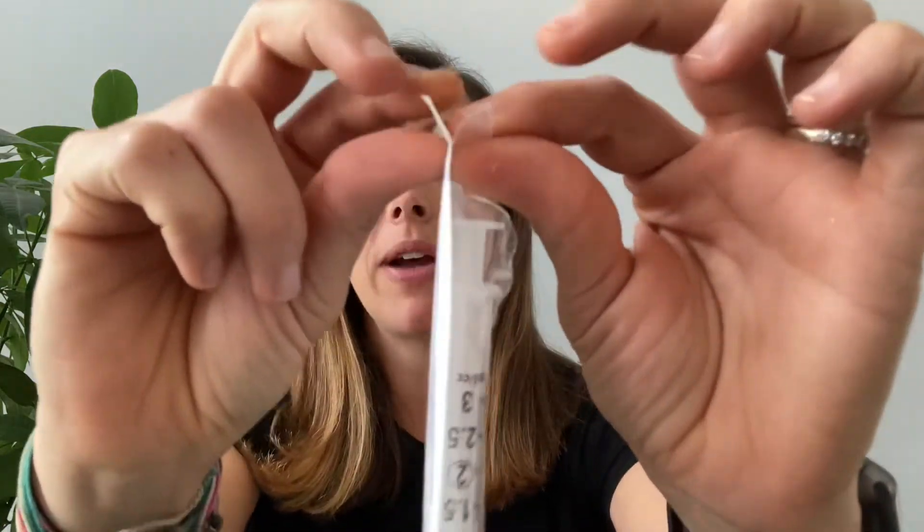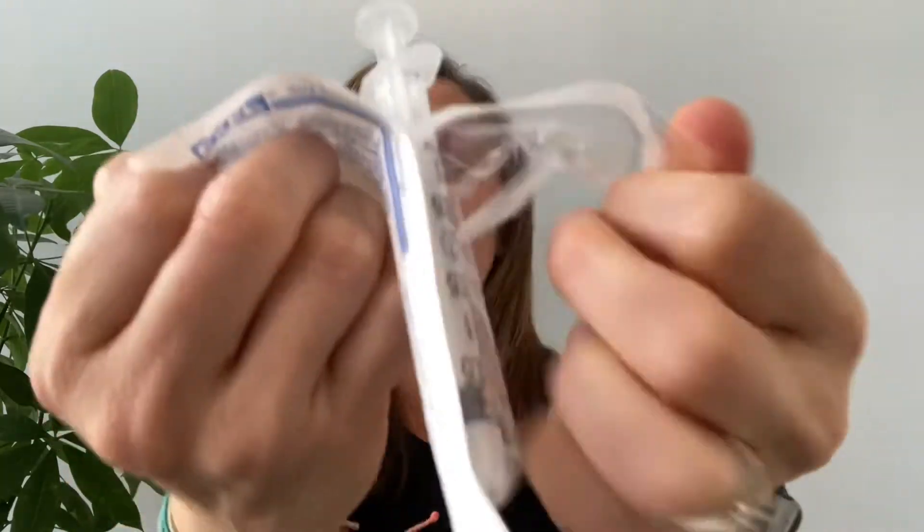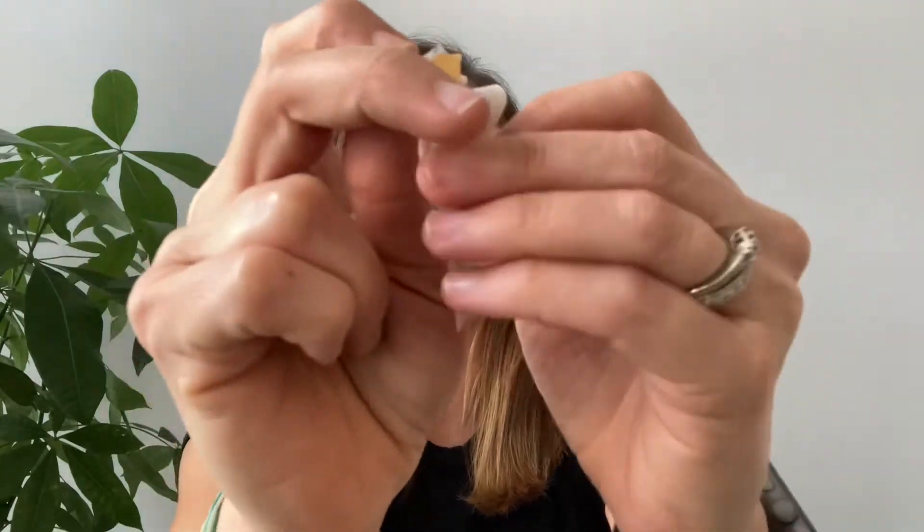The first thing you want to do is go ahead and open all these little baggies up. They all open up very simply on one side — it's kind of like opening up a cheese stick. I tell all my patients with diabetes you've probably eaten more cheese sticks than you've ever wanted to in a lifetime, so this should be a familiar process. Open everything up so it's all ready to go.